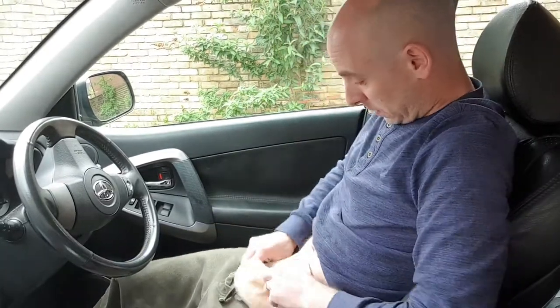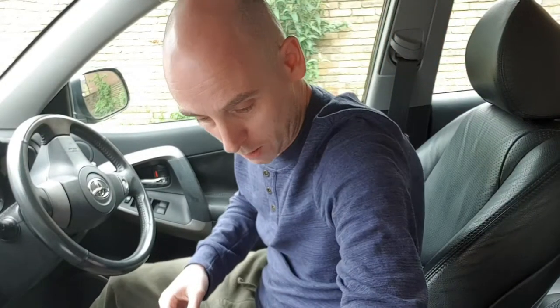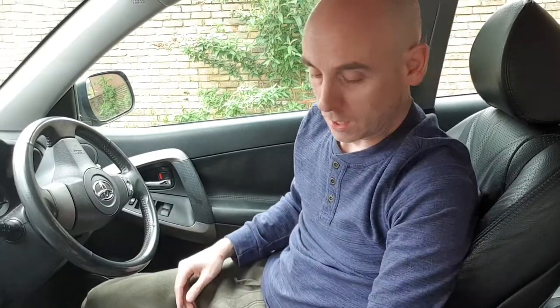Let's take the peg off, t-shirt back over — you wouldn't know it's there. Let's put everything back in the bag. So there you go — all back in the bag, all stored away. Like I say, this bag doesn't come out with me. This is what I have hanging on my wall in my bathroom generally. I take much smaller amounts out when I go out for the day — I don't need that much. So that was just a quick video to show you that you can change a stoma bag in the driver's seat of your car.